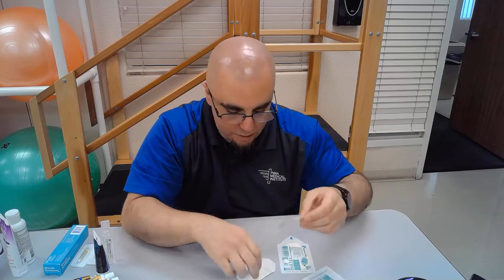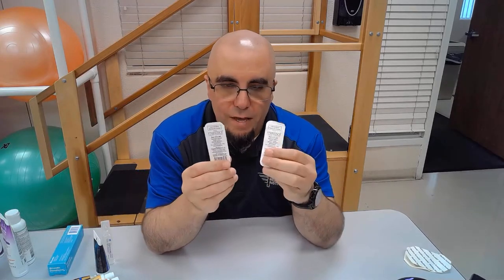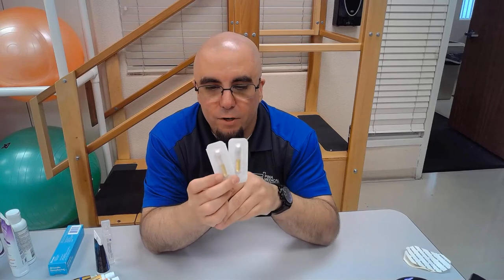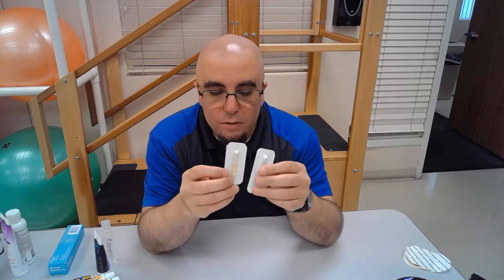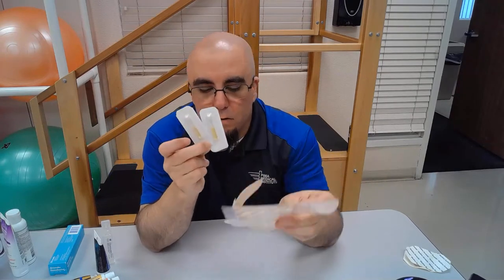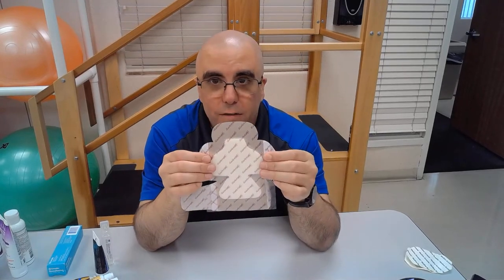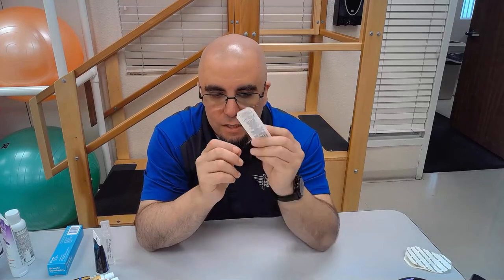Clear film dressings protect the skin and keep it from breaking down further. You also have mastisol — nothing more than liquid bandage. These can be used two ways: for small minor cuts and abrasions as a primary dressing itself, or applied around the edges of a dressing that isn't sticking down. If a patient's skin is oily, mastisol around the edges helps the dressing adhere better.